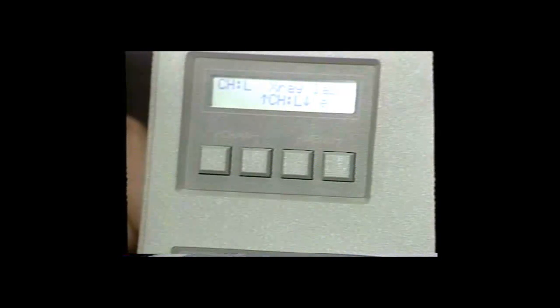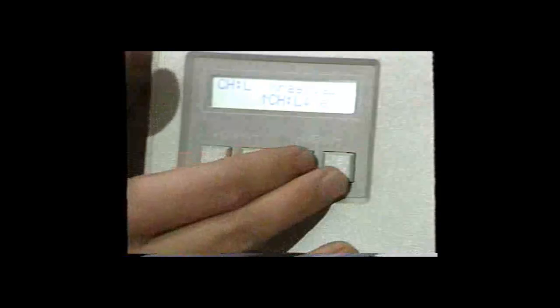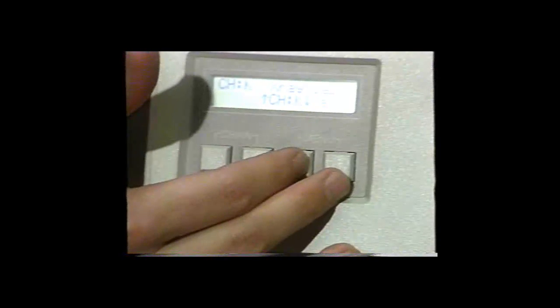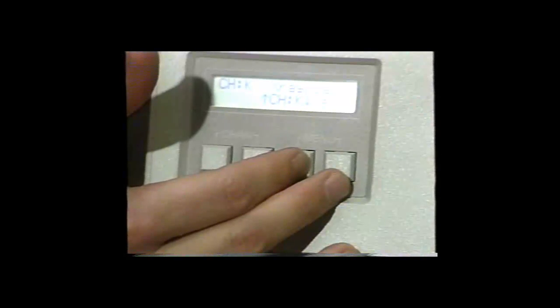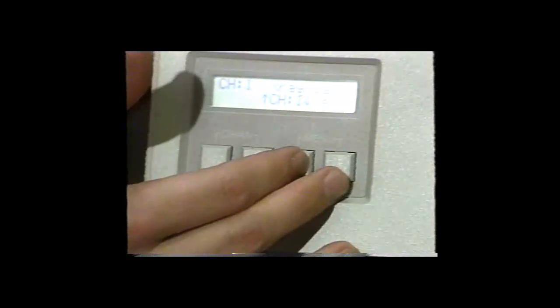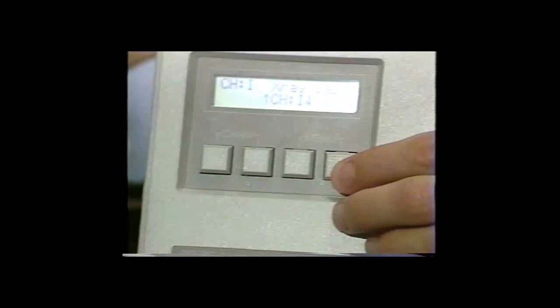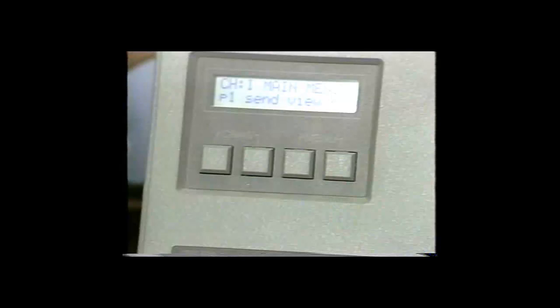Using the two keys directly underneath the arrow keys, you can select anywhere from channel A to channel L, and stop at the location you would like to be in. Once you select a channel, push the exit key and return back to the main portion of the menu. To measure control strips on the Model 381, return to the main menu, page 1.